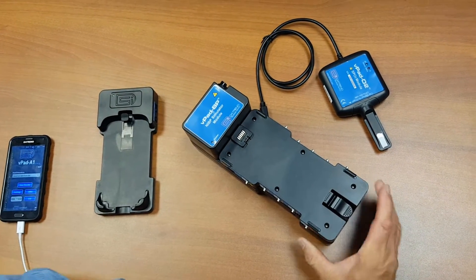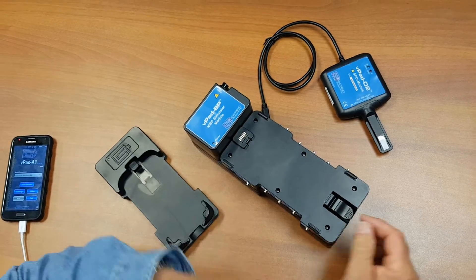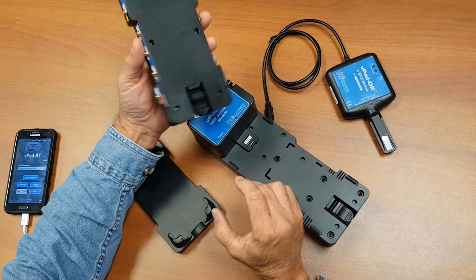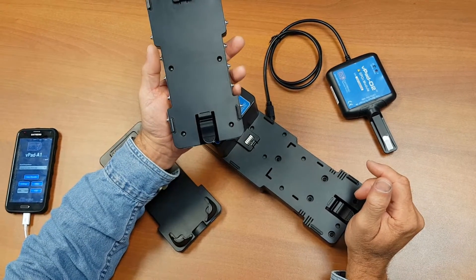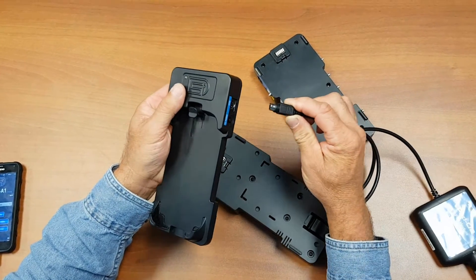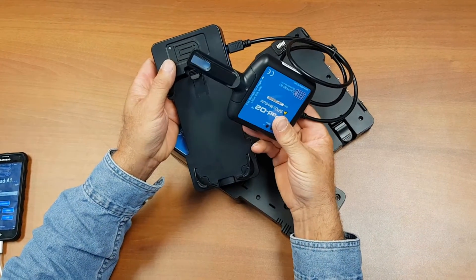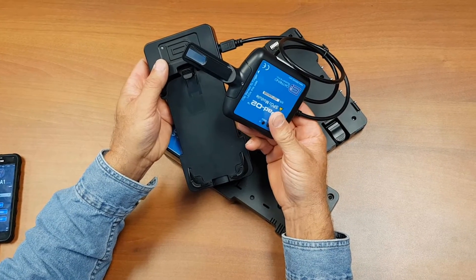The unit itself consists of the control unit and a multi-parameter simulator. This is equivalent to the A1, so it provides ECG outputs, temperature, cardiac output, and invasive blood pressures. The other module is the SpO2 module. It connects to the interface unit and provides the interface to the finger probe of the SpO2 pulse oximeter.